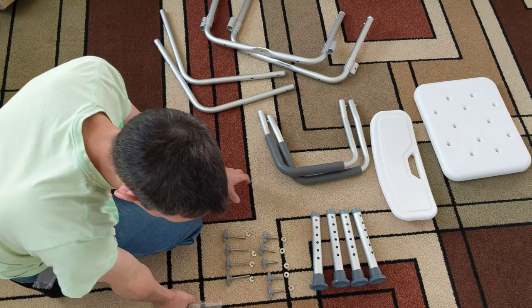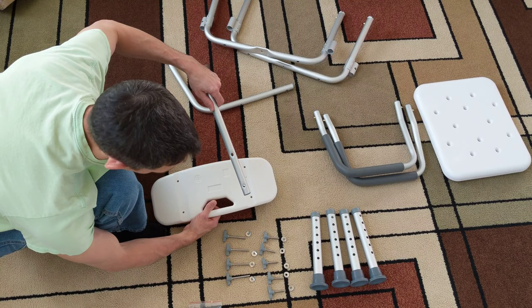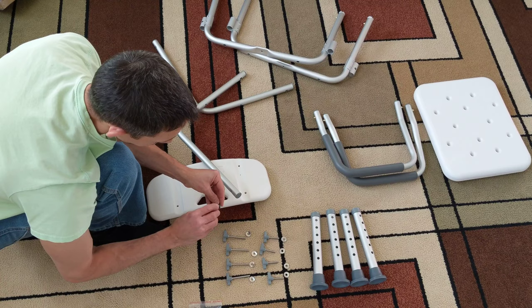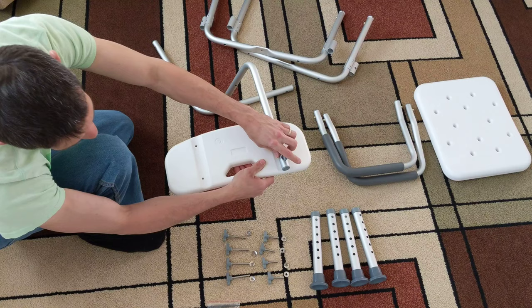So we're going to start with the back of the chair here, and put these two pieces on there. It says to use short screws. I'm going to put the washer on so it goes over the holder — just like that. This is no tools required, apparently.